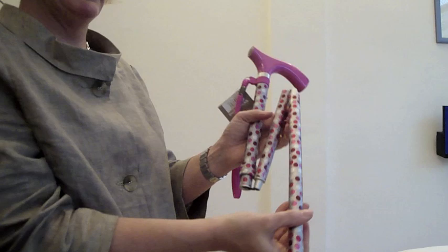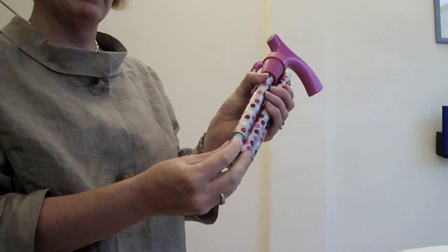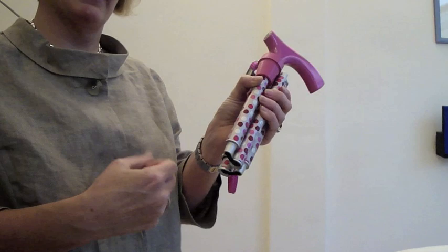Final section: small turn, pull it apart, feed it into your hand. The turn is actually releasing any pressure on the stick — releasing those joints. You can also tap the ferrule on the floor and that also releases if there's been any seal. It's important to know those too.